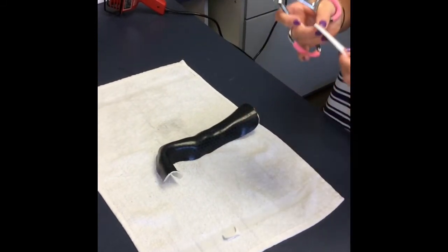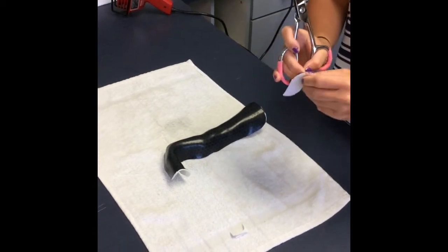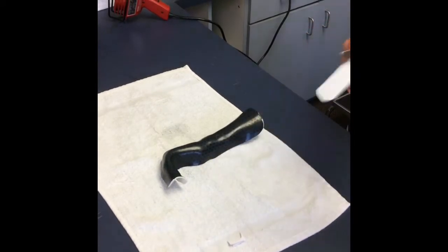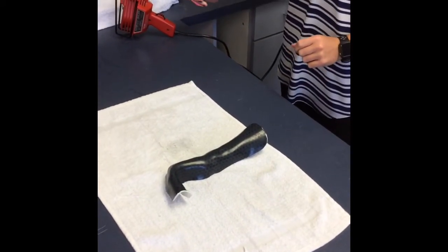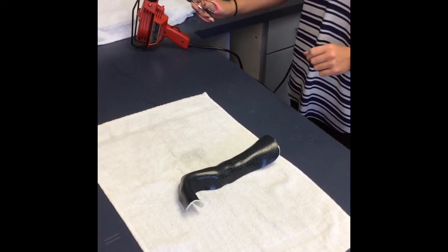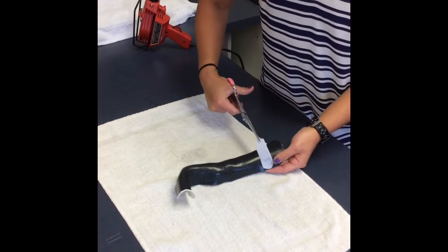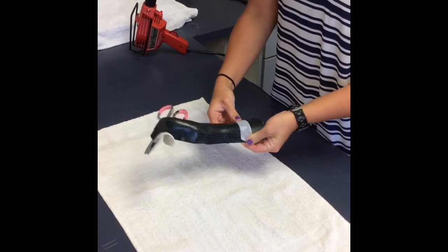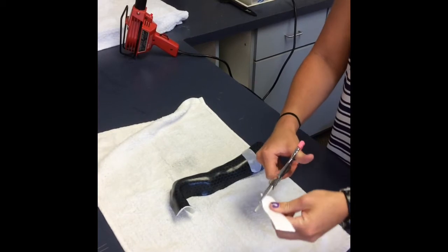Next, you are going to attach the Velcro and soft straps to your orthosis. You should have four pieces of hook Velcro on your orthosis, and they should be long enough to go completely around the orthosis. One piece of Velcro should be at the proximal forearm, one just proximal to the wrist, one along the hypothenar eminence, and the last one on the ulnar side of the small finger. Use the heat gun to secure the hook Velcro.